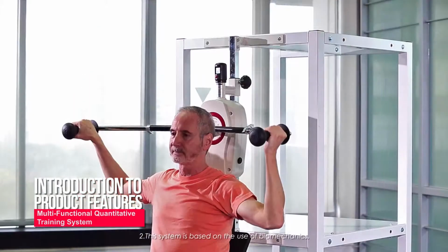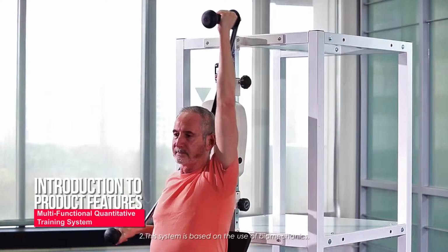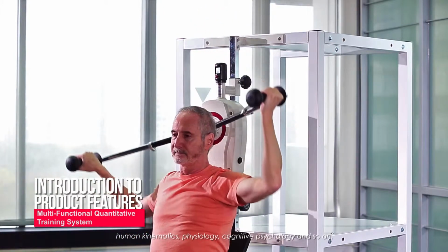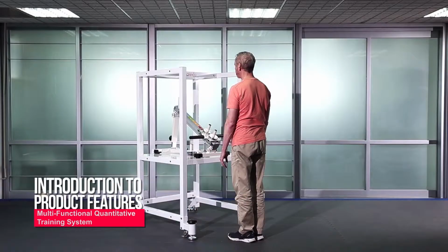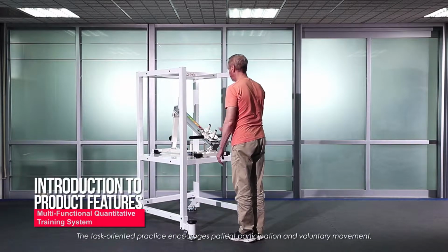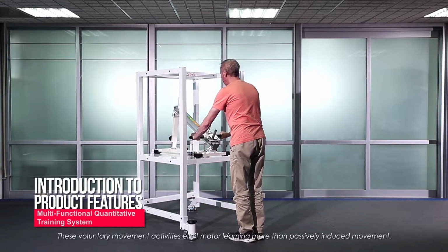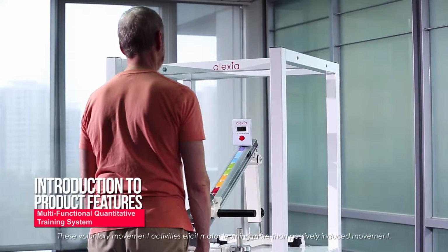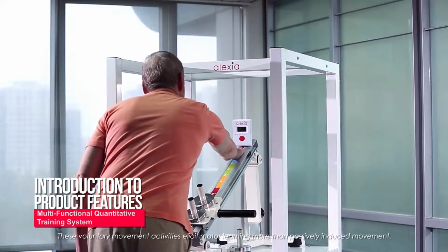2. This system is based on the use of biomechanics, human kinematics, physiology, cognitive psychology, and so on. The task-oriented practice encourages patient participation and voluntary movement. These voluntary movement activities elicit motor learning more than passively induced movement.